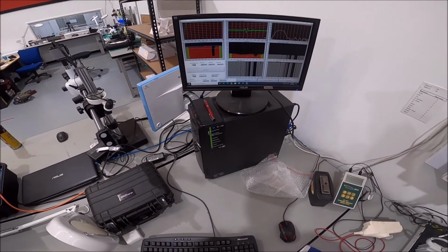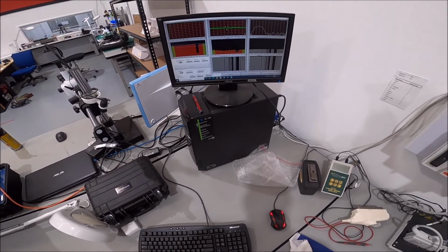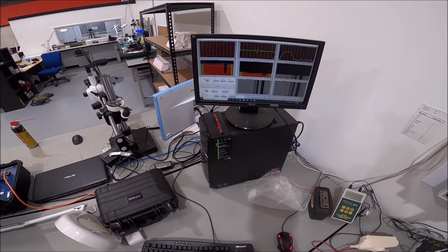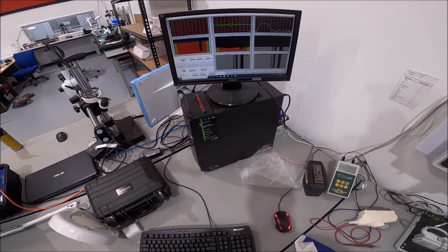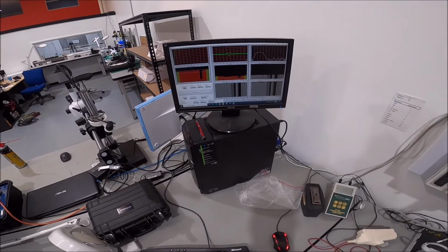If you were unlucky enough that you were positioning a Doppler, any sort of Doppler in that region, then you would have a problem. When the OEMs do the servicing on your machine, they only do Phantom tests, so they won't pick this up. If you have any concerns about your phased array probes, don't hesitate to give us a call today.